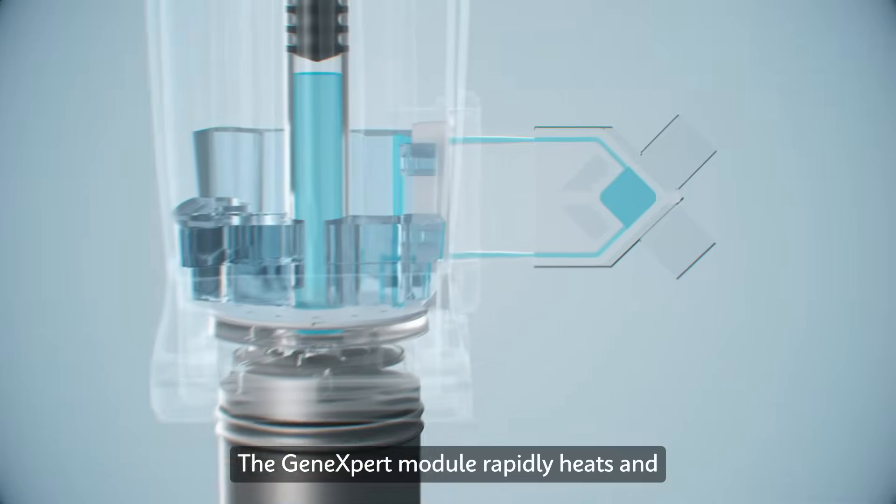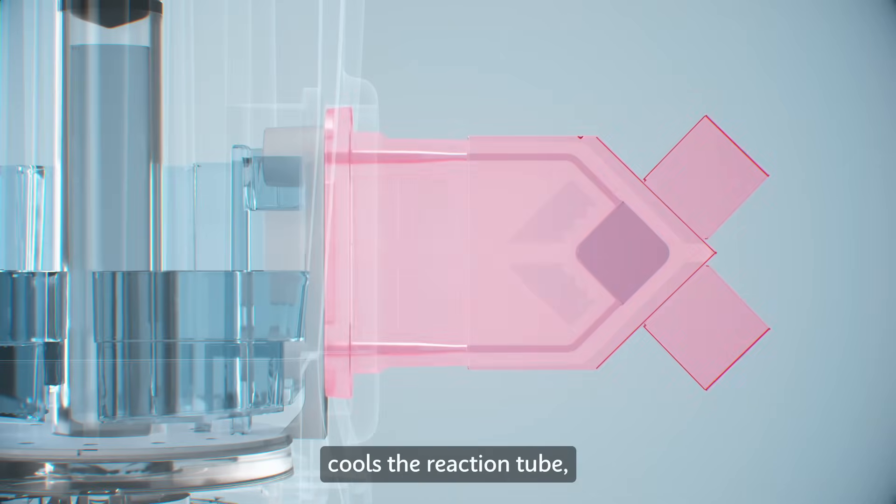The GeneXpert module rapidly heats and cools the reaction tube, while LEDs illuminate the solution with up to ten colors of light. If the solution grows brighter, color detectors confirm the presence of the targeted DNA we're looking for.